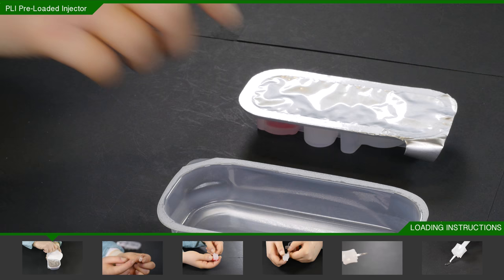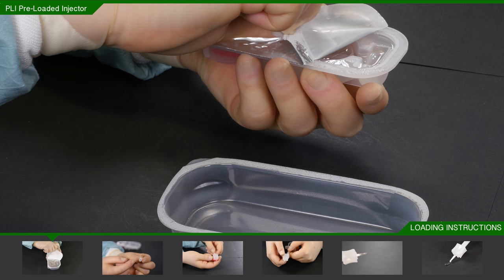Partly peel back the foil lid attached to the inner tray and empty out half of the saline.